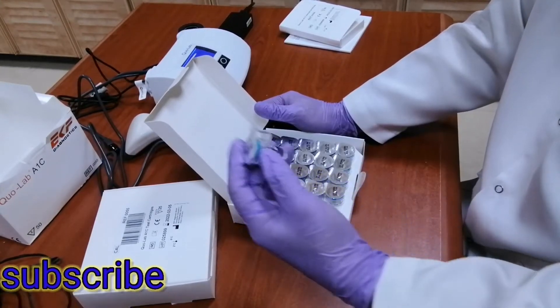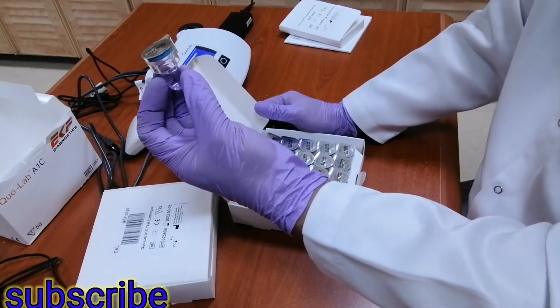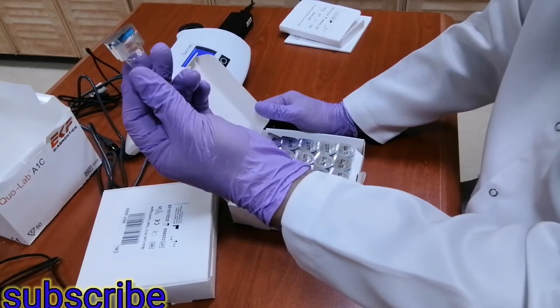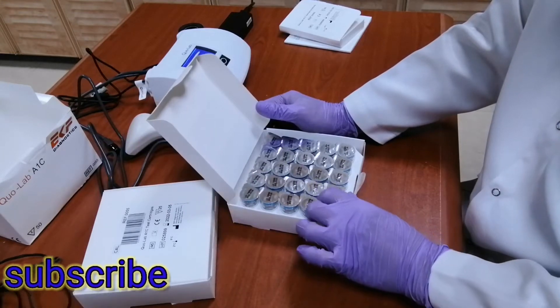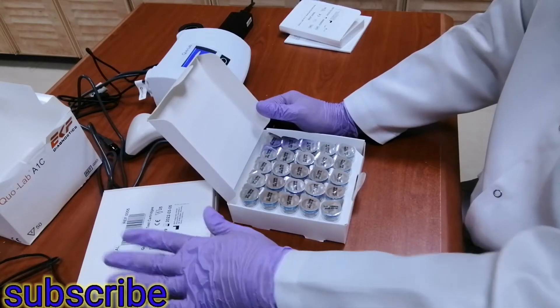These are the reagents put in vials — 25 pieces in one box. There are two boxes, so 50 pieces total.